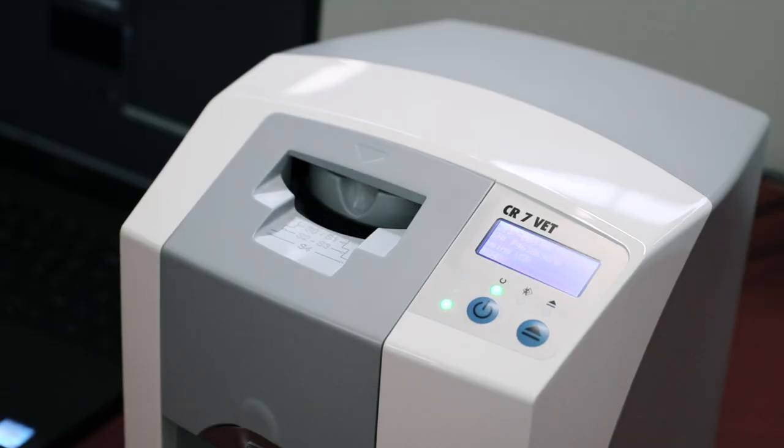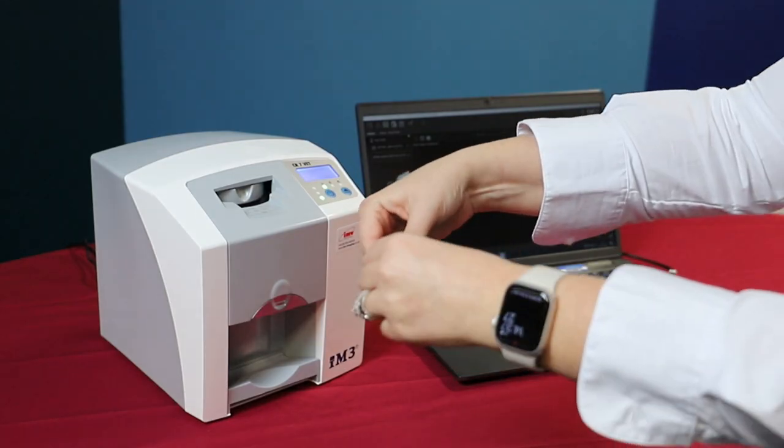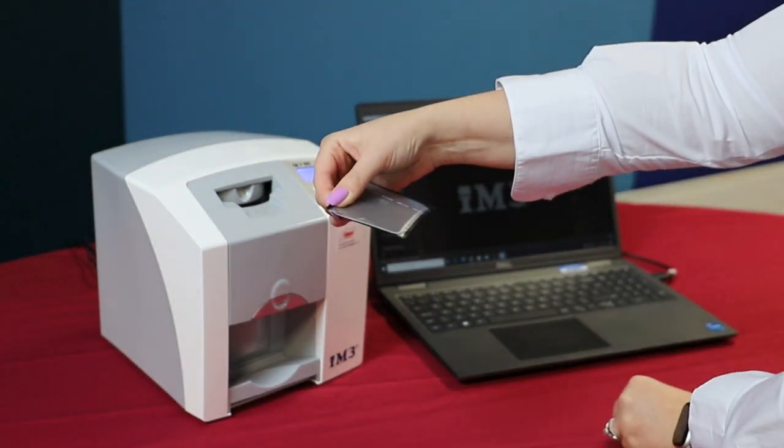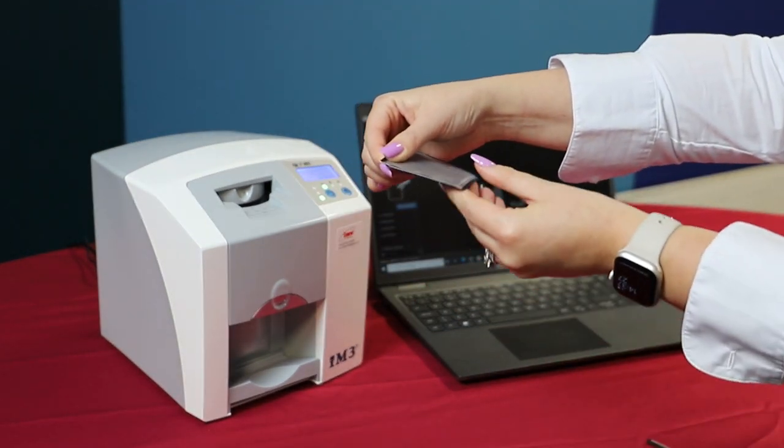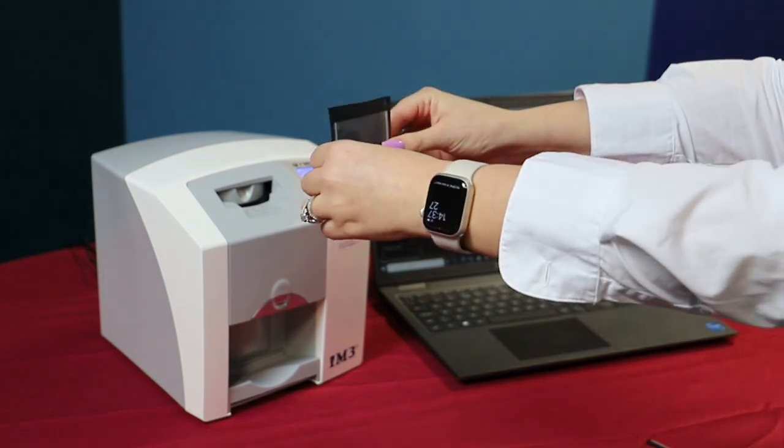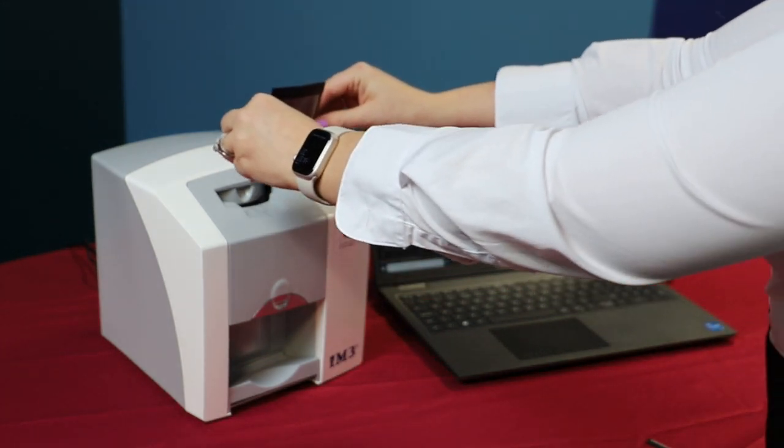To process the plate, rip the bottom of the envelope towards you creating an opening at the bottom of the envelope for the plate to be processed.